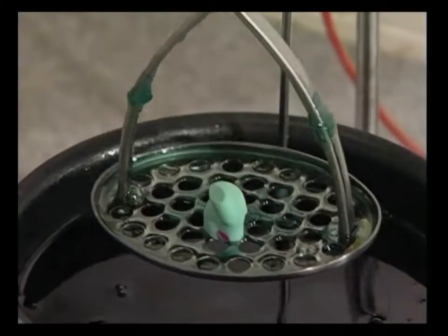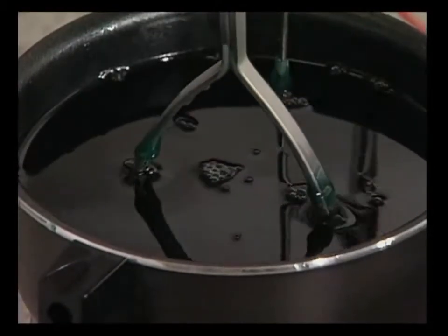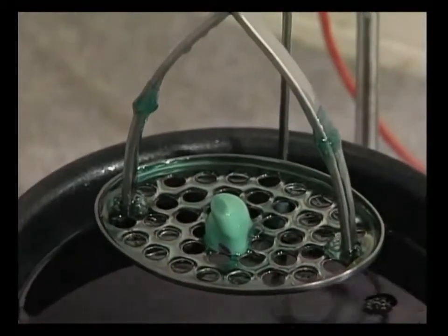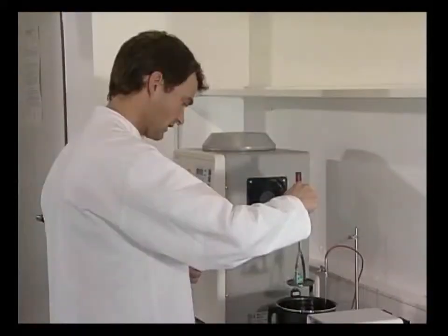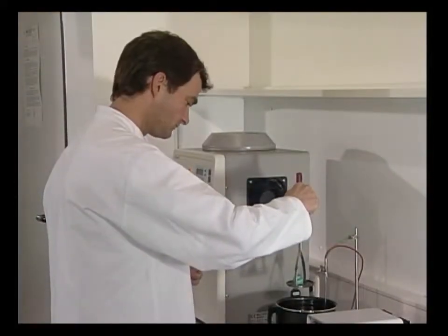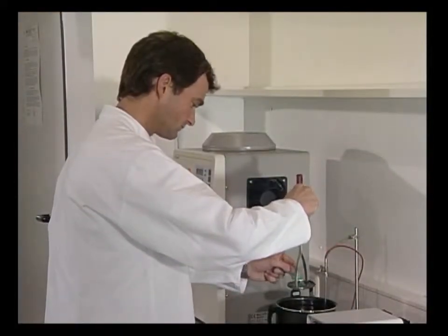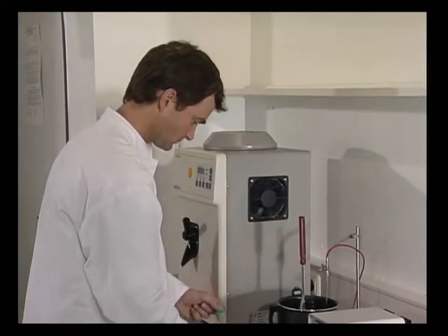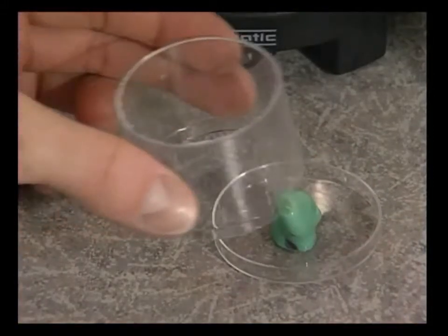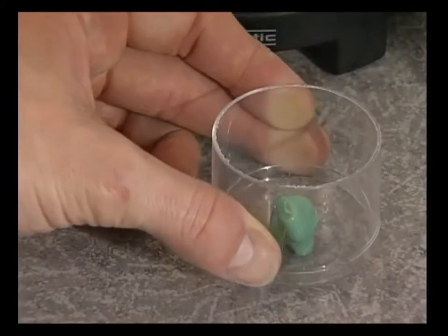The impression is placed in a dipping sieve and dipped vertically into the liquid wax. The impression must be completely covered by the dipping wax. After a brief cooling period, the impression is positioned in the middle of the bottom part of the investment form and the ring form is inserted into the bottom.